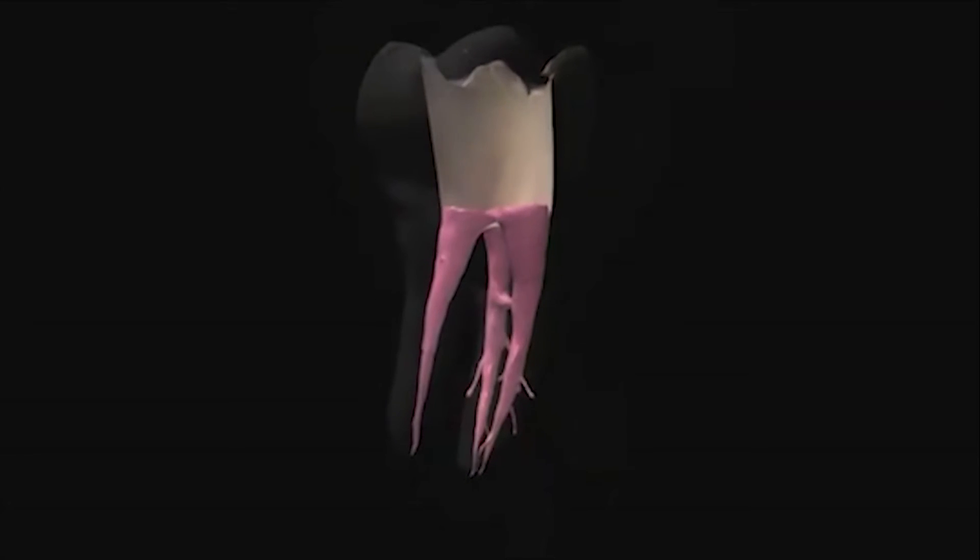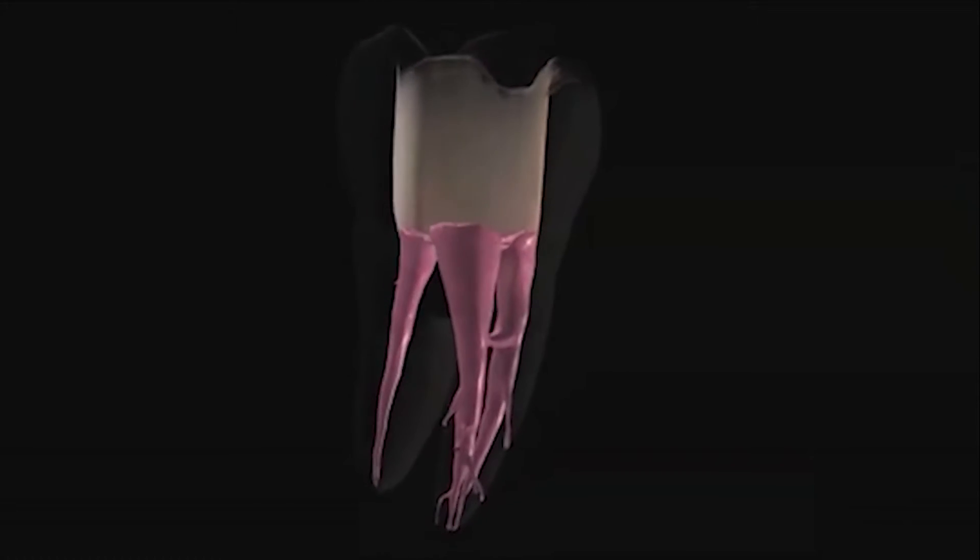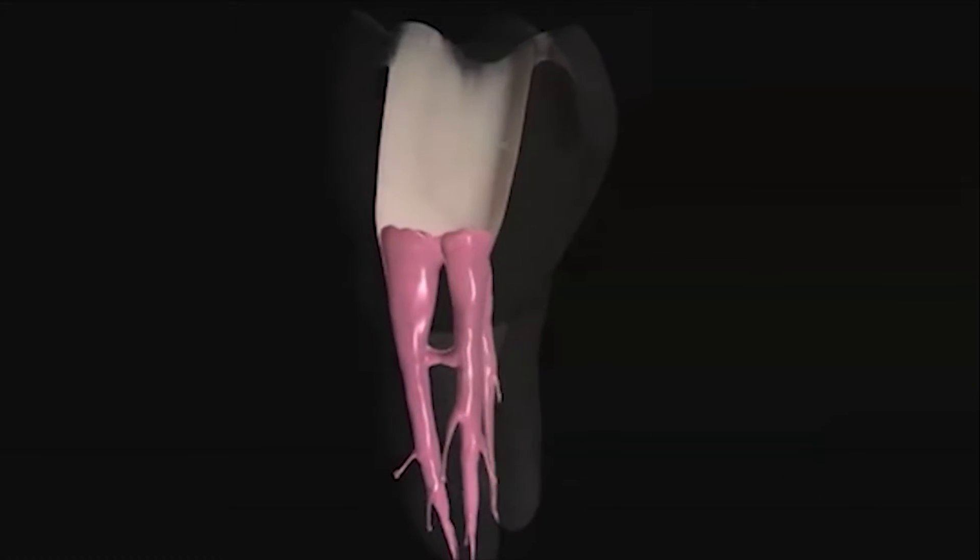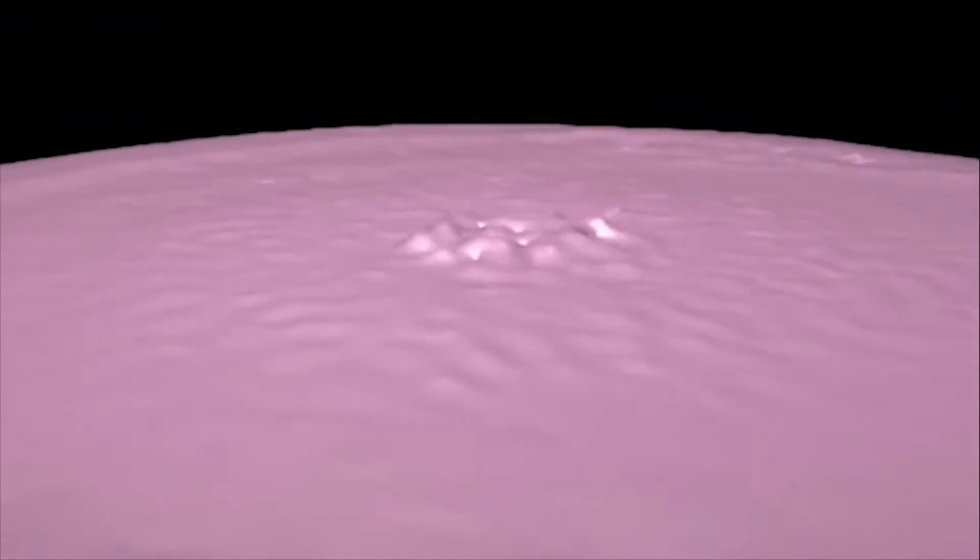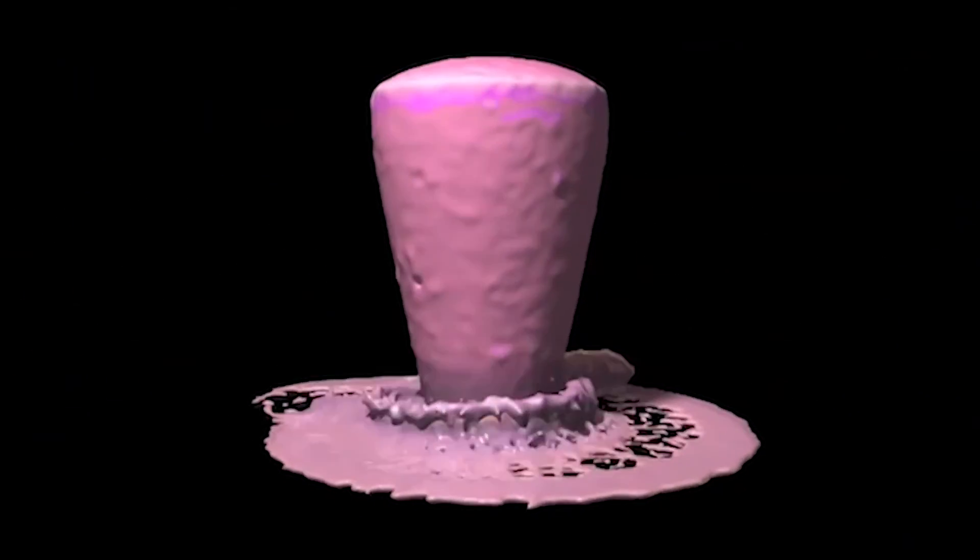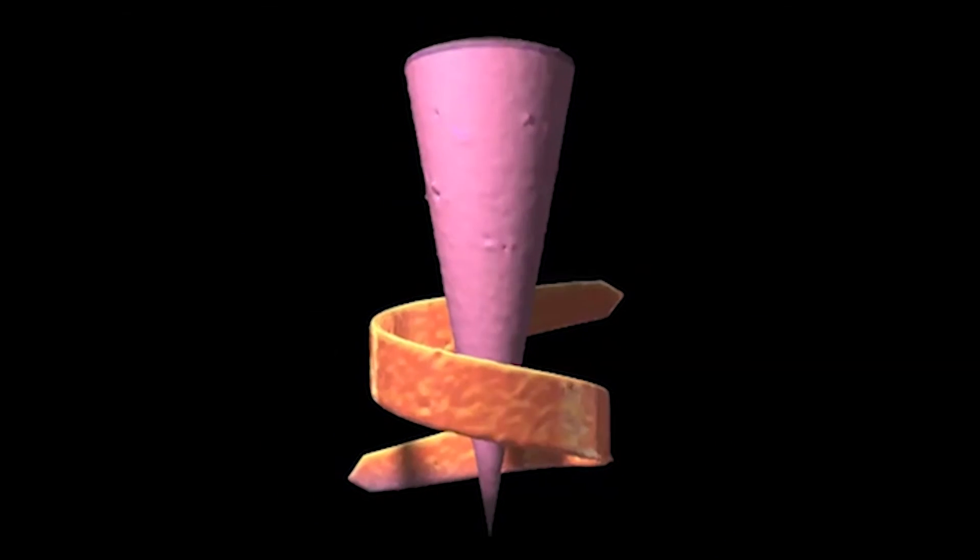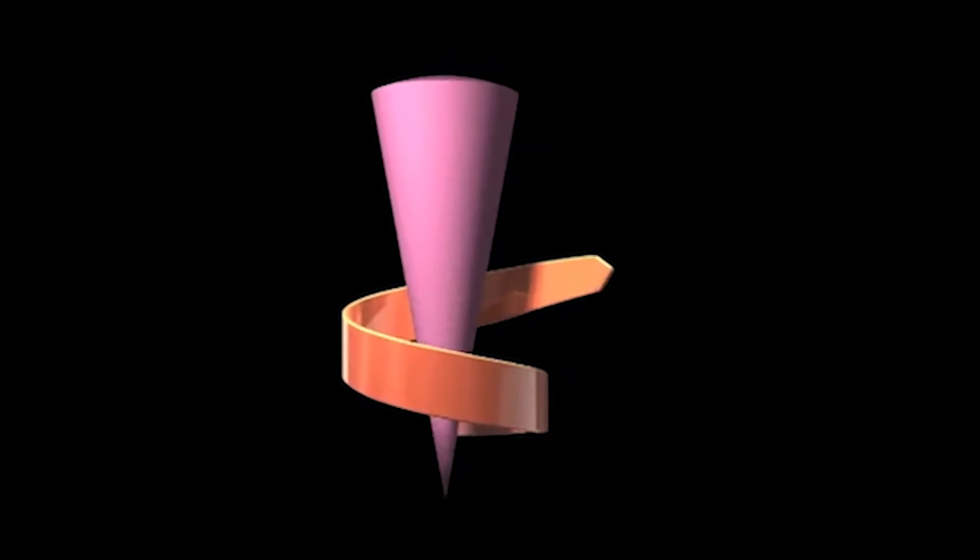GuttaCore, cross-linked gutta-percha core obturators. Everything you know and trust about gutta-percha. Experience the GuttaCore difference because it's what's inside that counts.